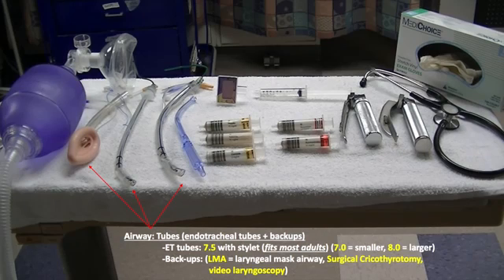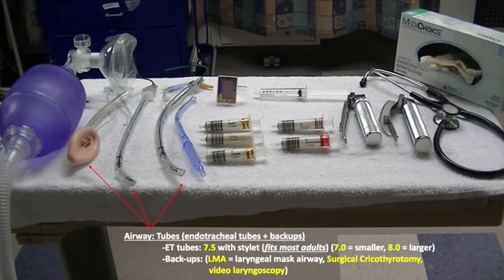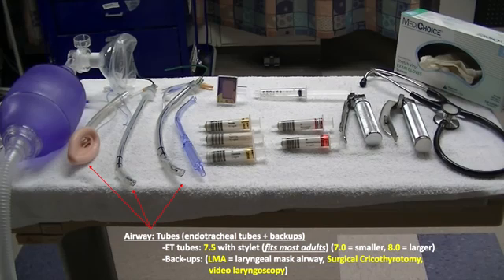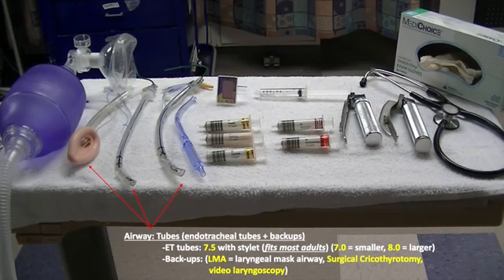Other rescue airways can include a surgical cricothyrotomy kit or video laryngoscopy. It is important to always have a rescue airway when preparing to intubate a patient.